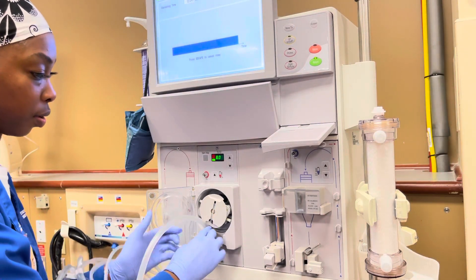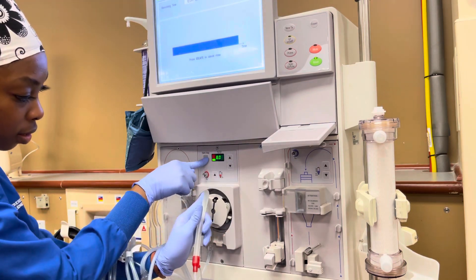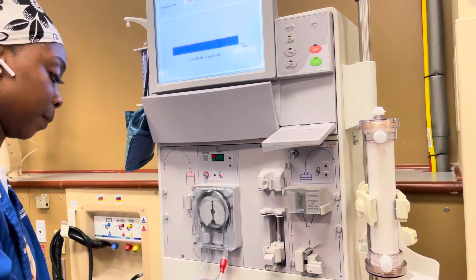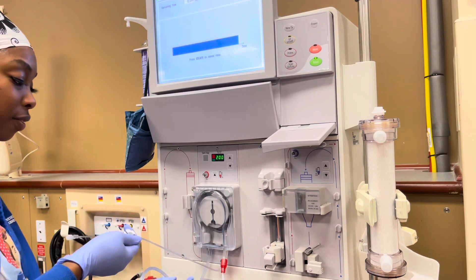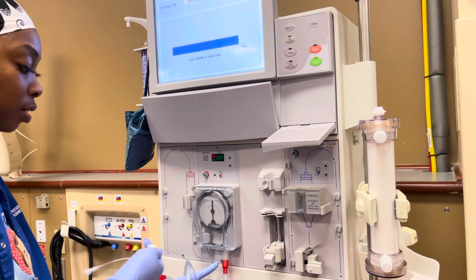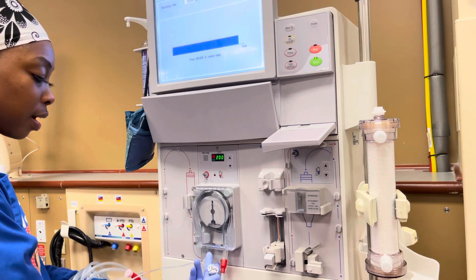You start with the clear end on the left, put it up in there, and press the start button to get the spin. Then I usually take this — everybody does it differently — but your red end, you want that to be on the right side of you when you're facing the machine. I usually just bring this guy up.